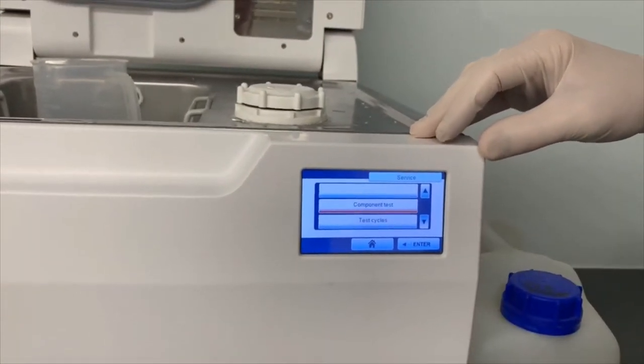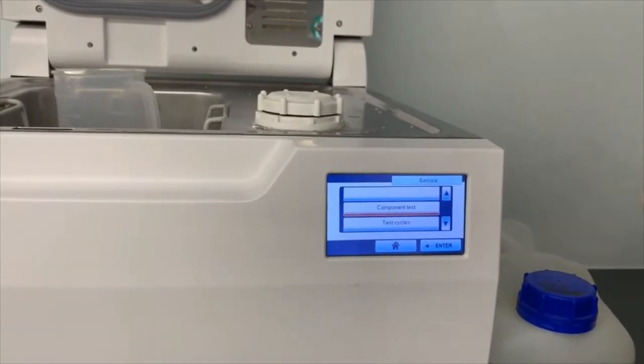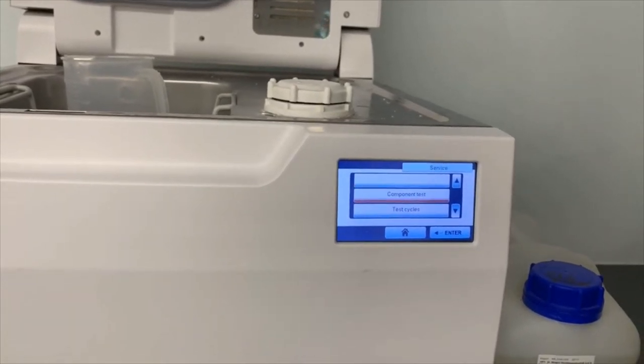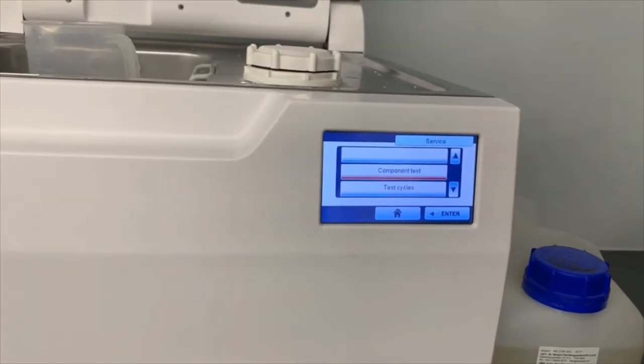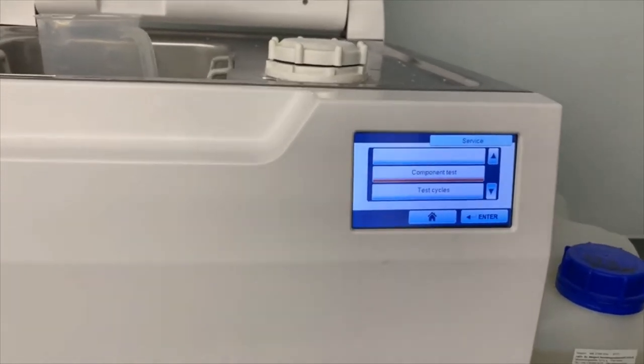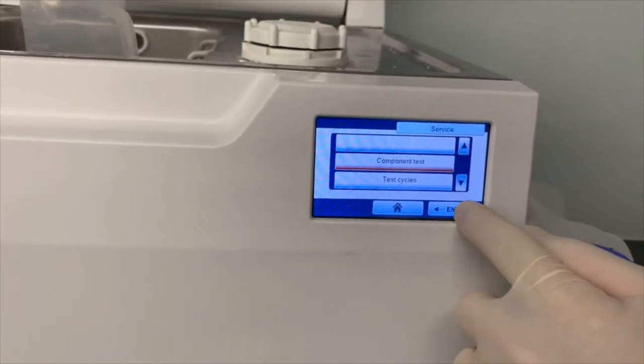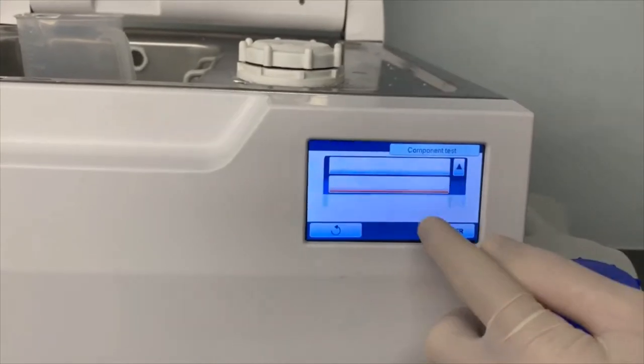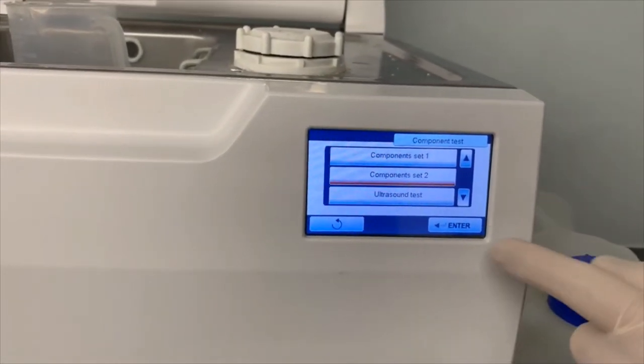Now the phone number at MoCom Australia is 0892444628. So 0892444628. And we can talk you through to this bit. In component set we go into, so it gives you a warning saying use some PPE and we want component set number two and enter.